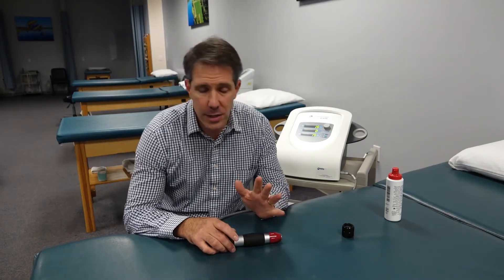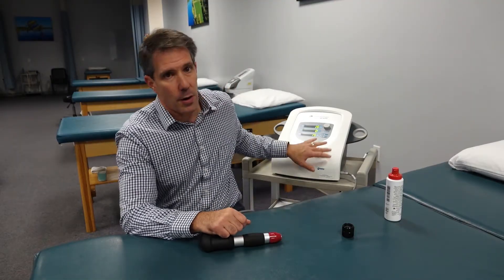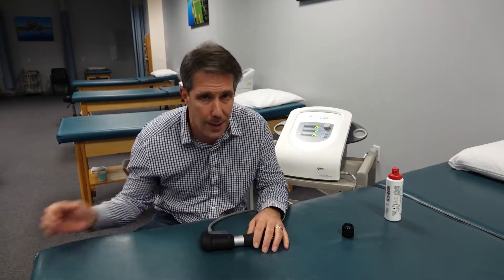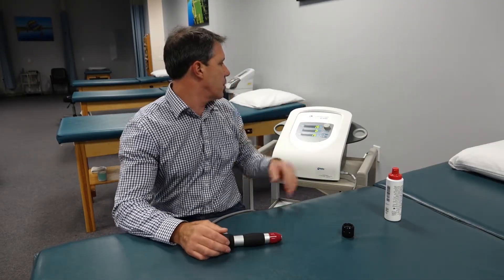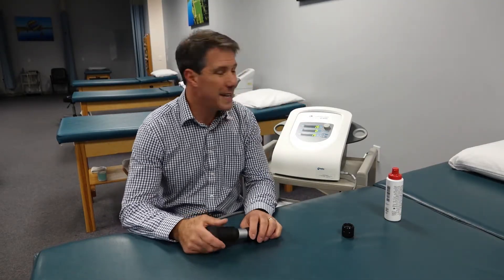Hello everyone, this is Paul from OrthoEvalPal and today I want to talk about RPWT or radial pressure wave therapy. Before we get started, I want to thank the fine folks from MedCorp Professionals for letting us borrow their unit for a while. We've been using this one for about a month now with some very excellent results. This one happens to be the Chattanooga Mobile 2 RPW.